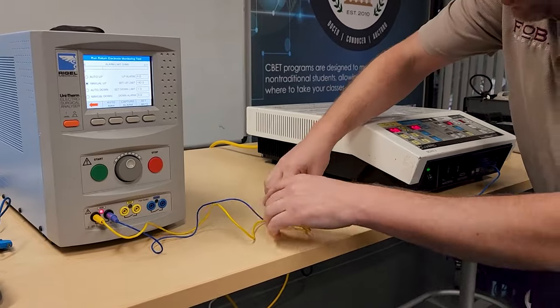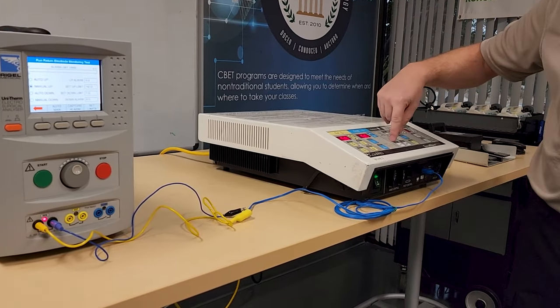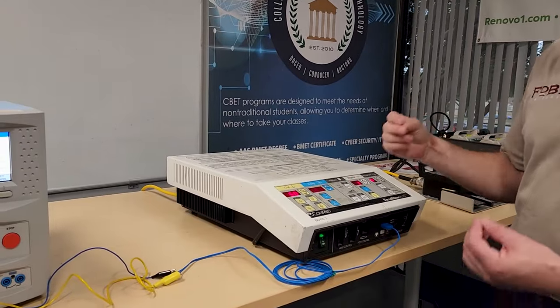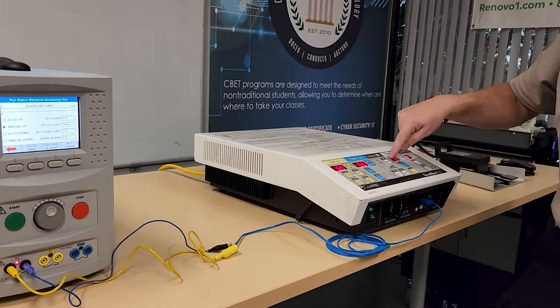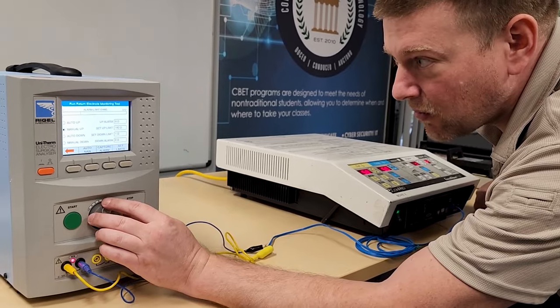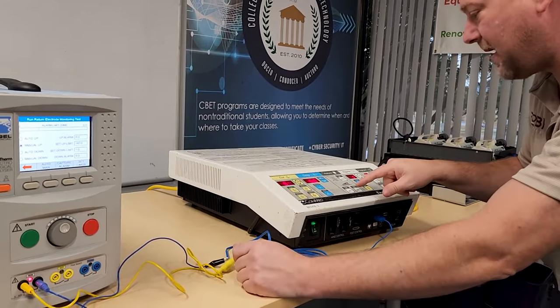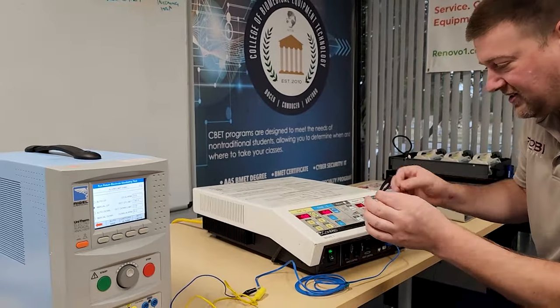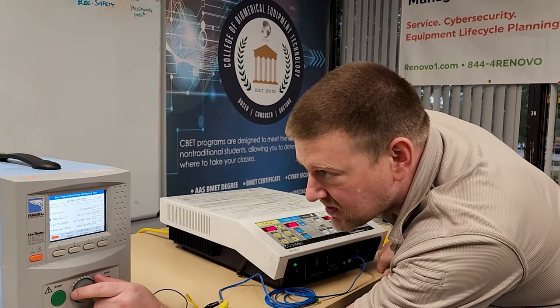I have two gator clips separated so I don't have a dead short. With older machines, you had to manually select between single pad and dual pad, and when you got a return fault, you had to click Monitor Set to reanalyze the circuit. All new ESUs constantly analyze the circuit; old ones required manual prompting. Testing now: at zero ohms on dual pad, the unit alarms — it is not happy. On single pad it's happy, because between dead short and about seven to nine ohms it's fine. Switching to dual pad and increasing resistance — at eight ohms it throws a return fault.